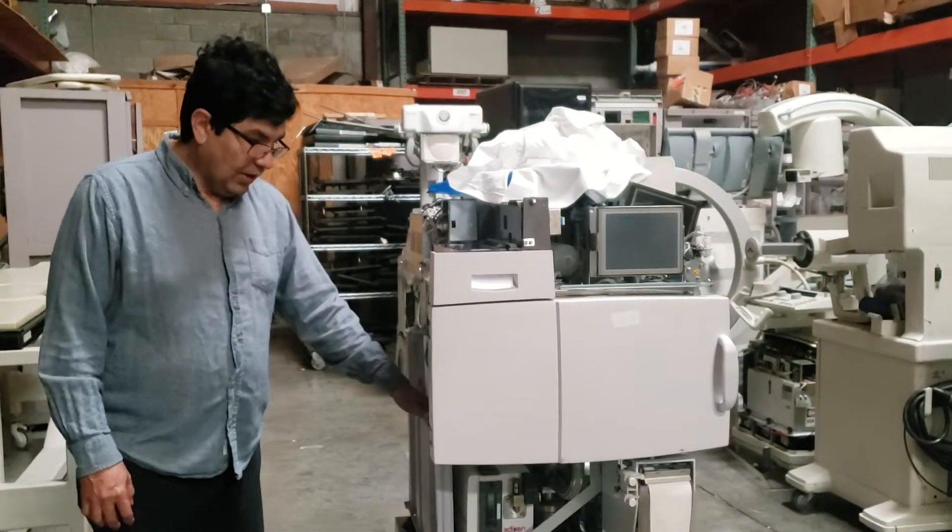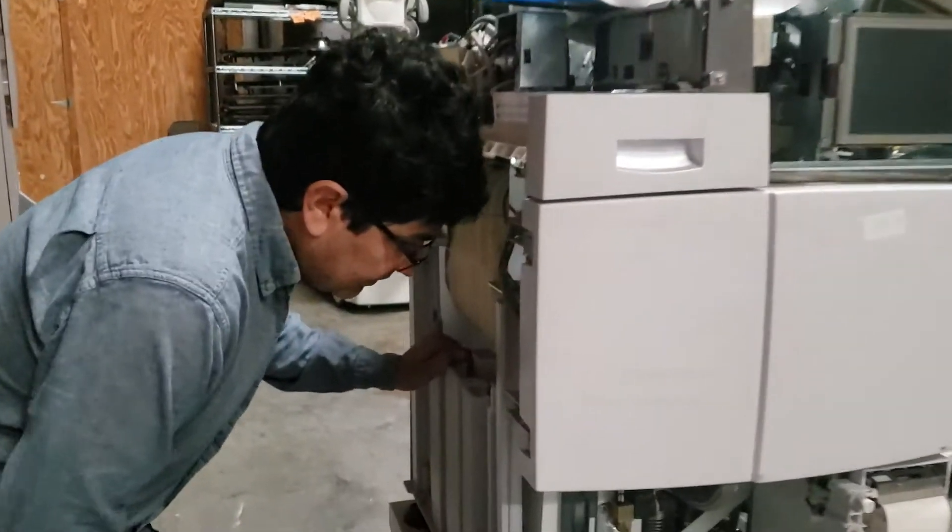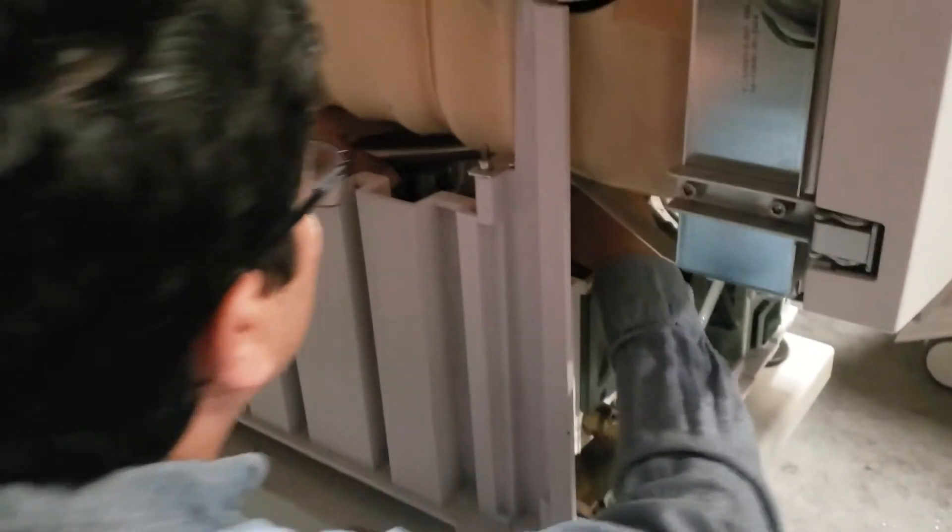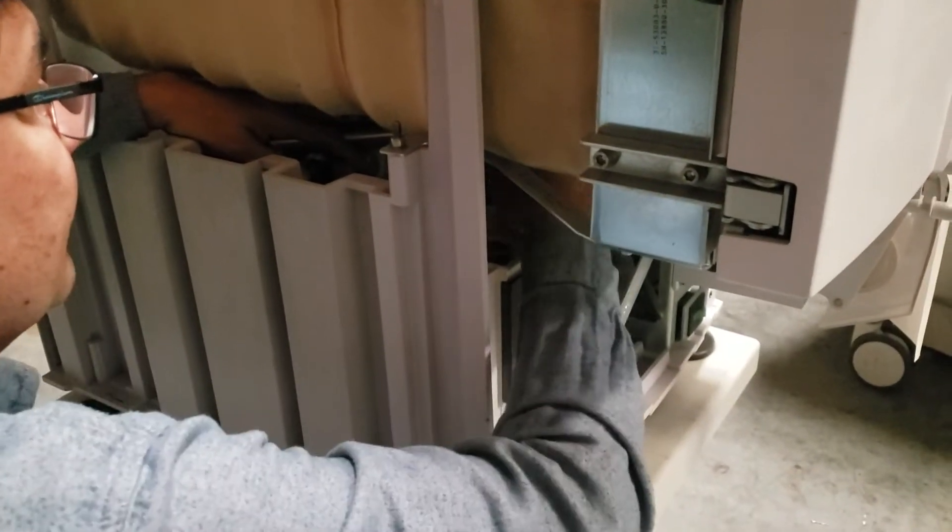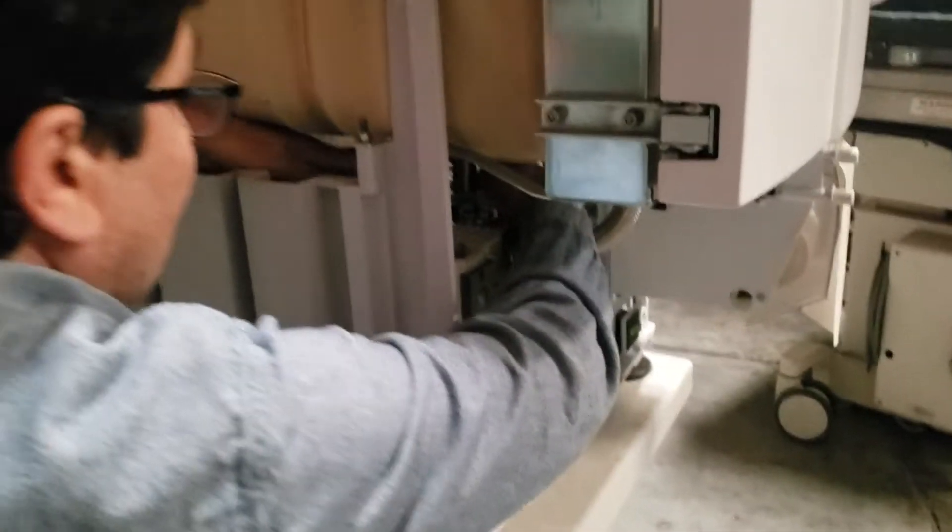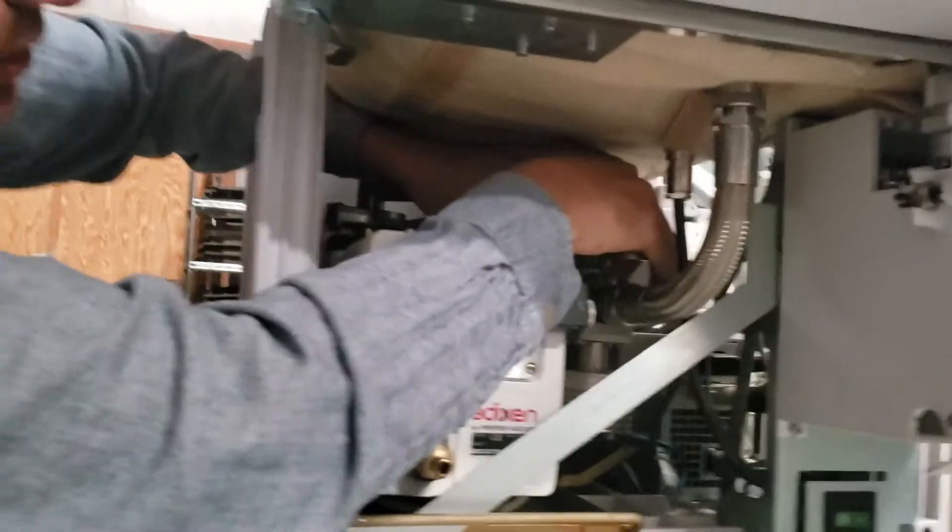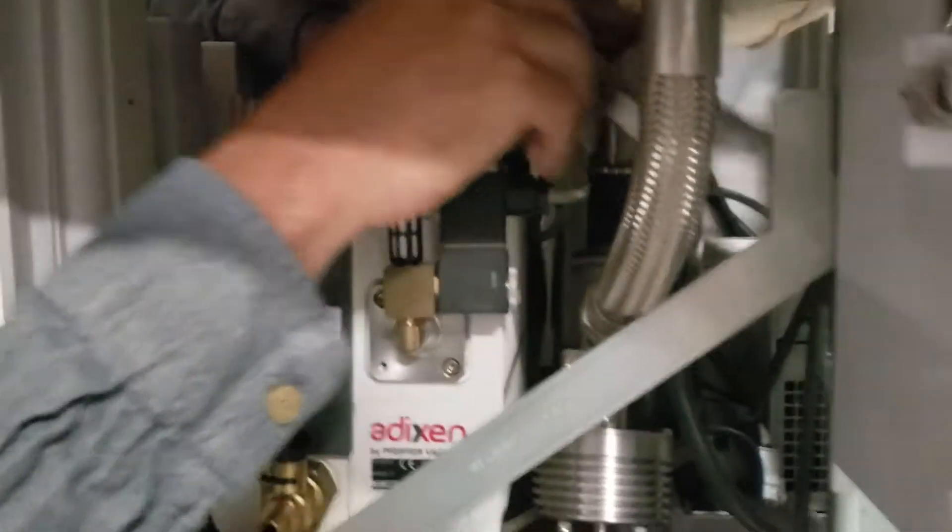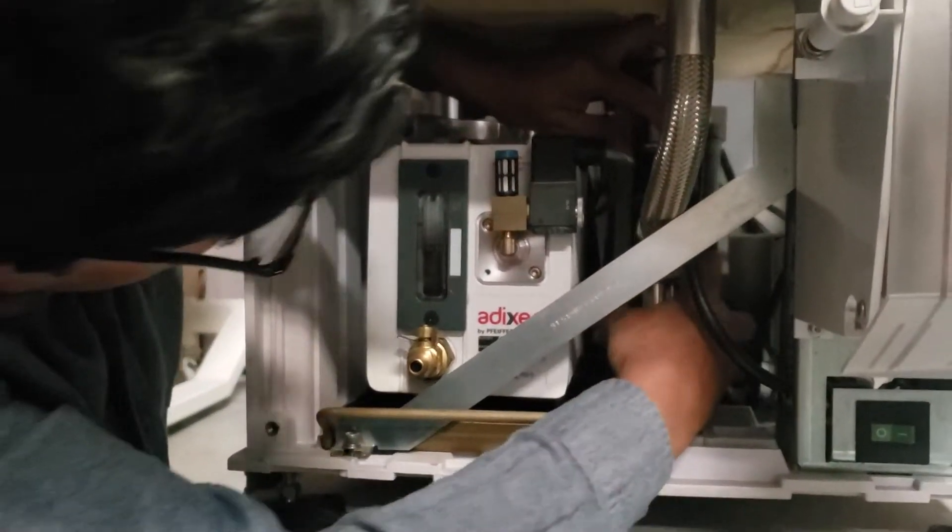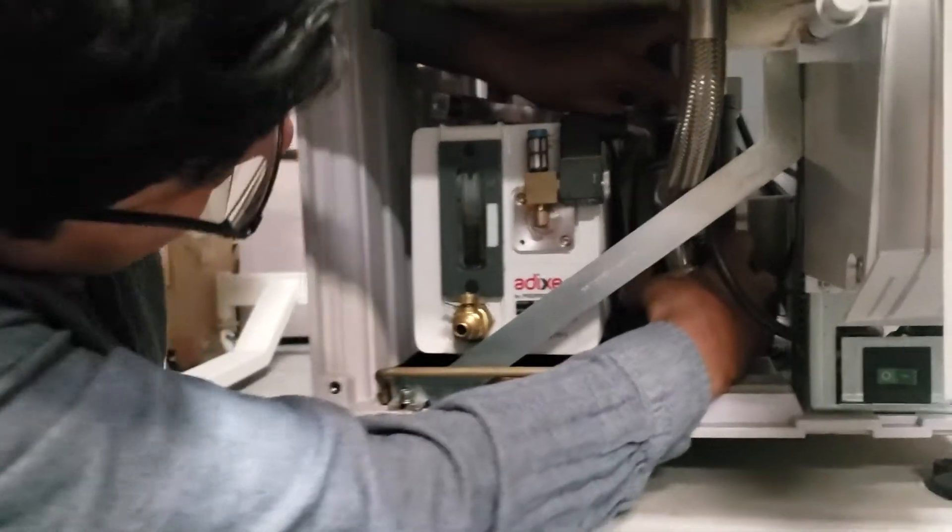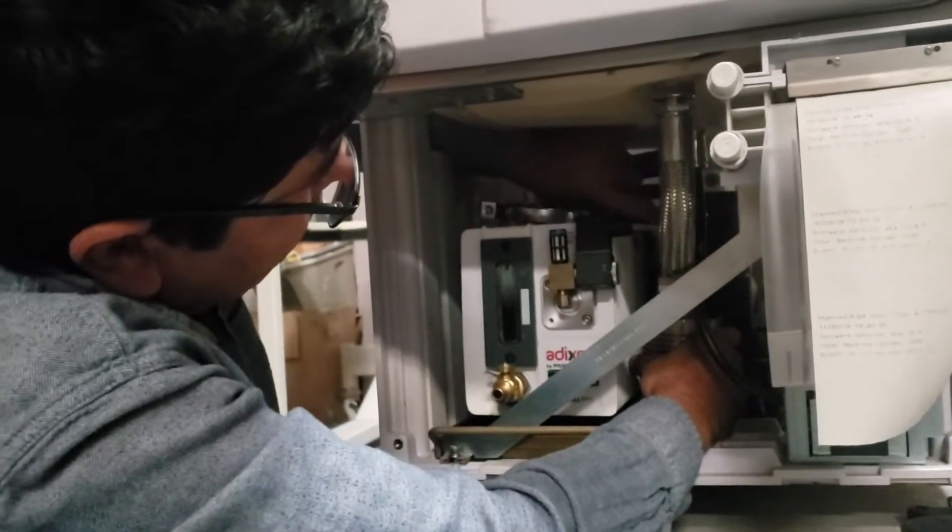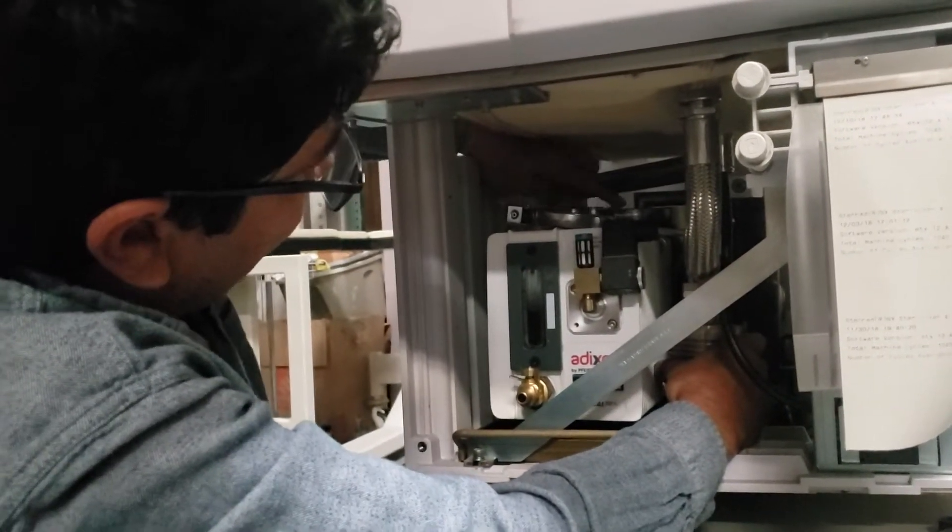Okay, after the transfer there are a few points that you need to check. You need to be sure all these quick release clamps are okay, so the best way is just to open it, be sure that it's okay, very easy to open and put it back.